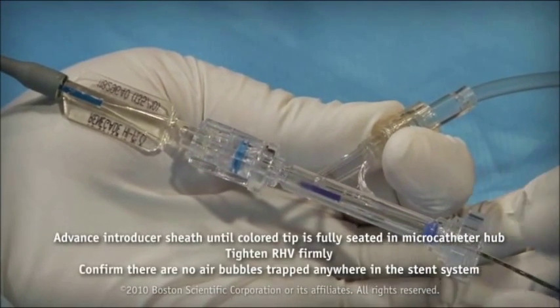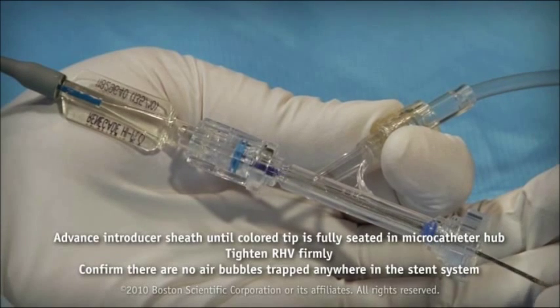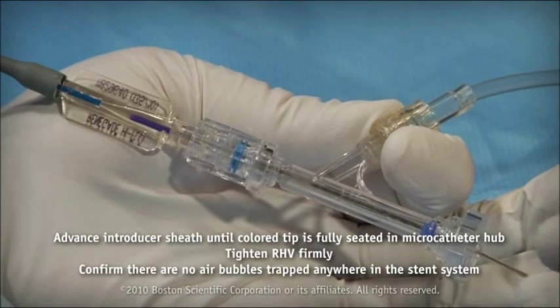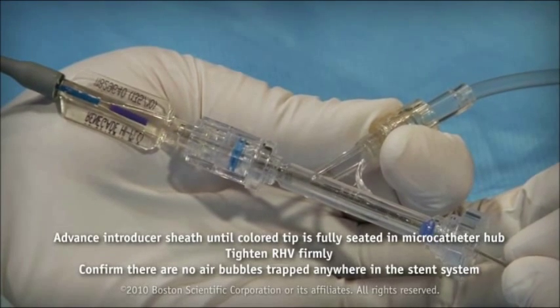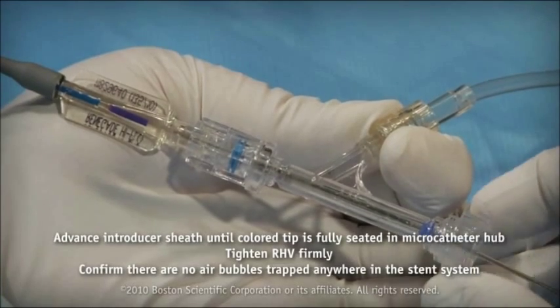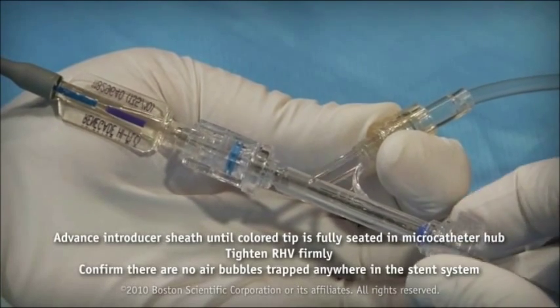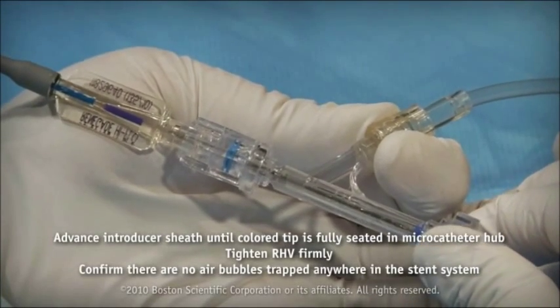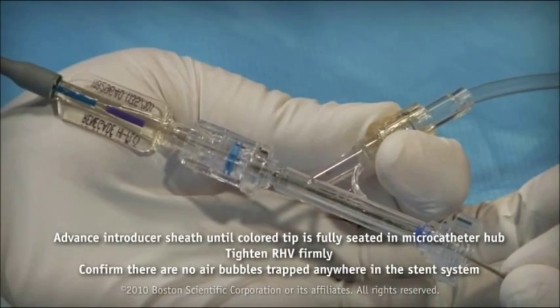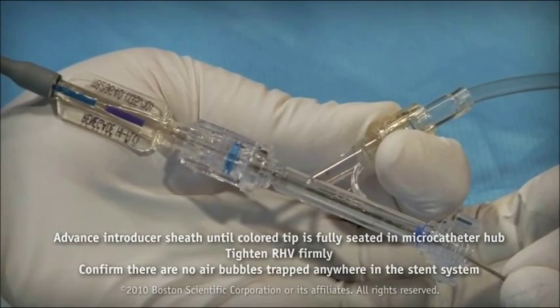Advance the introducer sheath until the colored tip is fully seated in the microcatheter hub. Tighten the RHV firmly. Be sure to pull gently on the introducer sheath to ensure it is secure. The introducer sheath tip should not move.